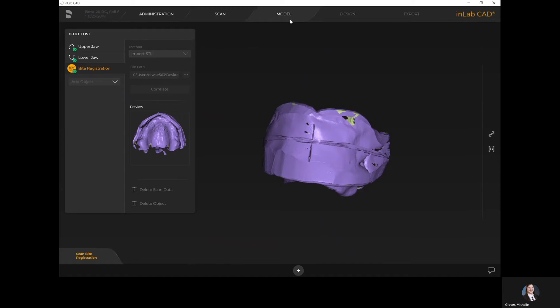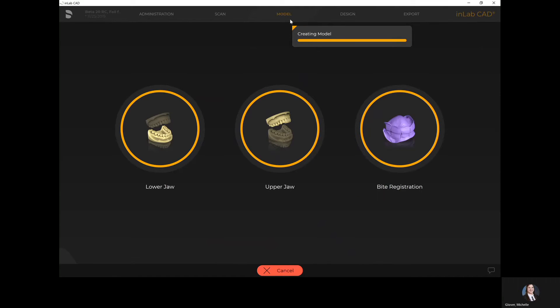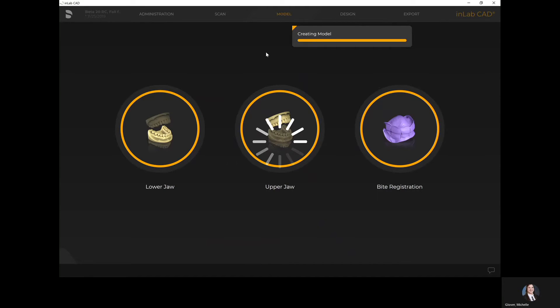Moving into the model step, the very first step of the model phase — much like in software 20 — is editing my model. If there are any changes I want to make, like smoothing or filling in small voids, I can do so here. Also, if this were an immediate denture with existing teeth still present on the model, I could use the replace tool to virtually extract any teeth that will be extracted. Designing immediate dentures is still possible in the InLab system using the regular denture workflow, simply adding the extra step of virtually extracting teeth.